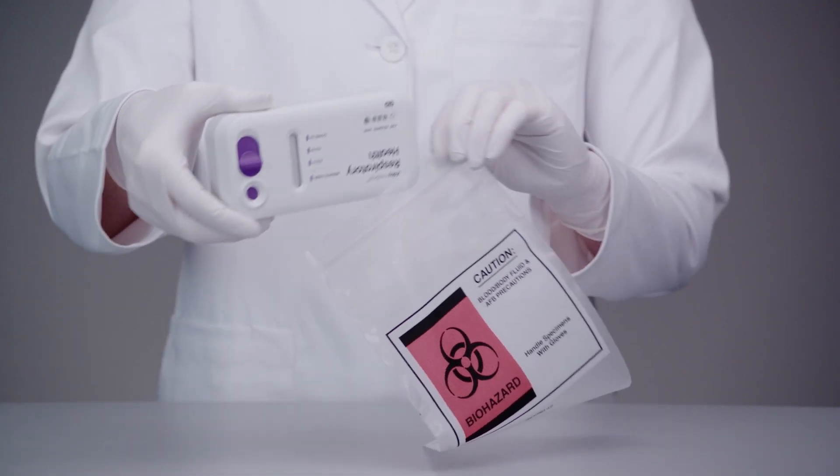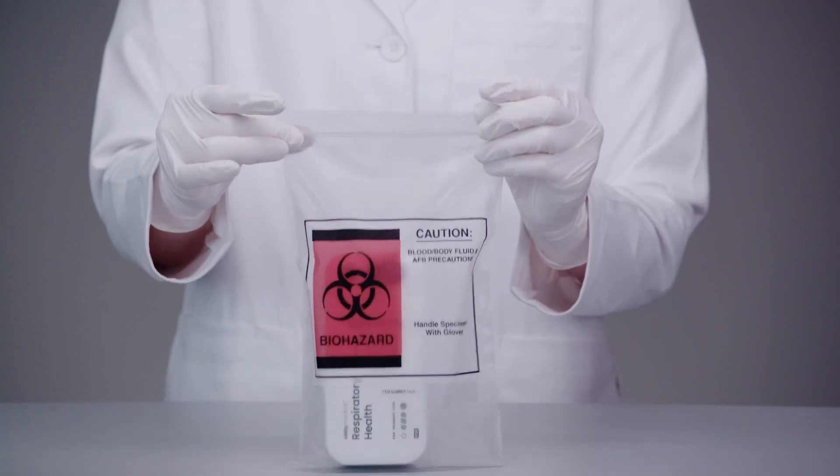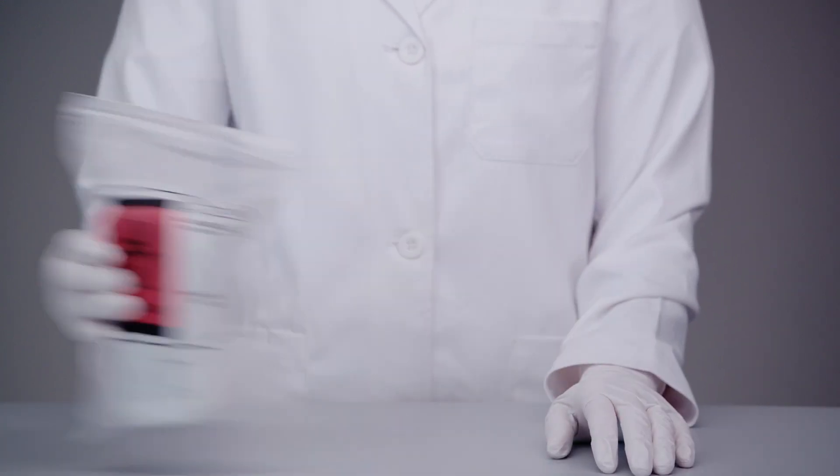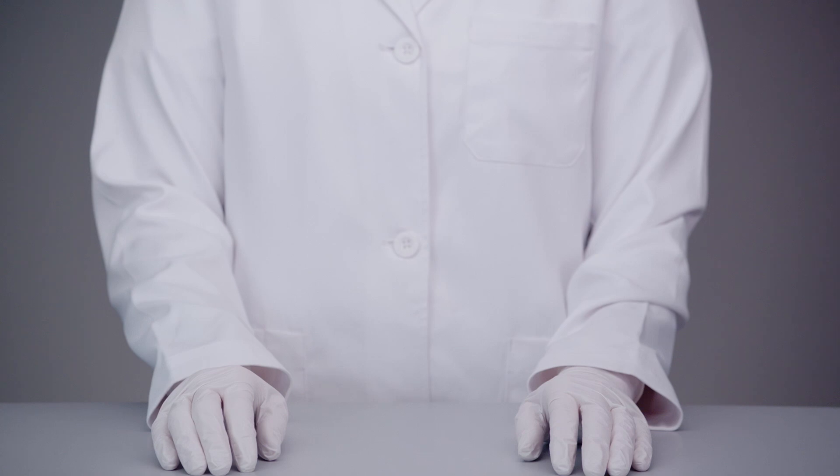After recording the results, place the device into the provided biohazard bag. Dispose of the device and other materials according to your institution's guidelines.